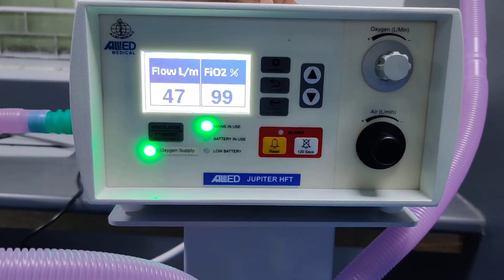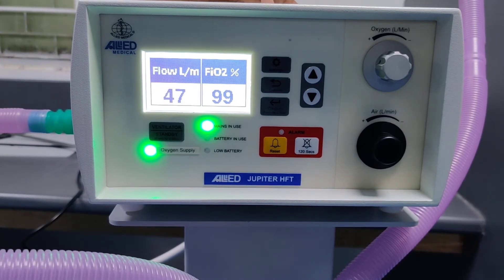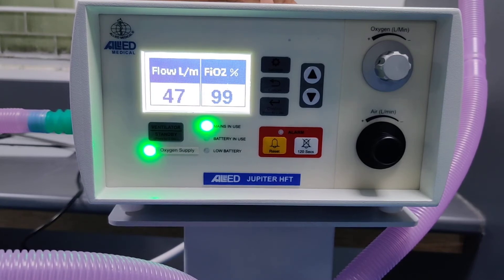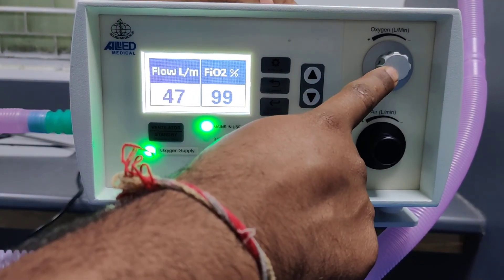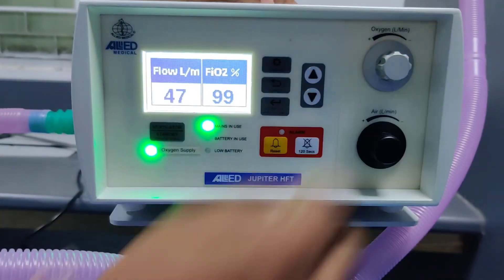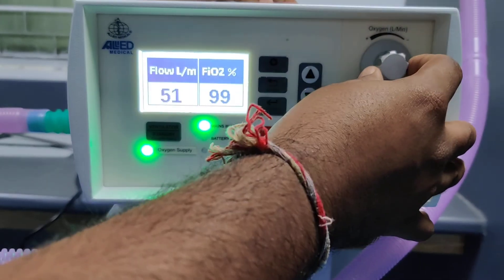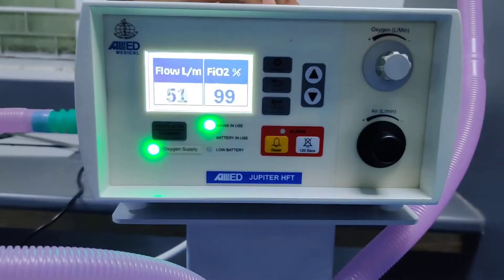The maximum flow rate that can be given to the patient is 80 liters per minute, and oxygen enrichment can be set from 21 to 100 percent by rotating the knobs. To increase a value, rotate the knob anti-clockwise; to decrease the value, rotate the knob clockwise.